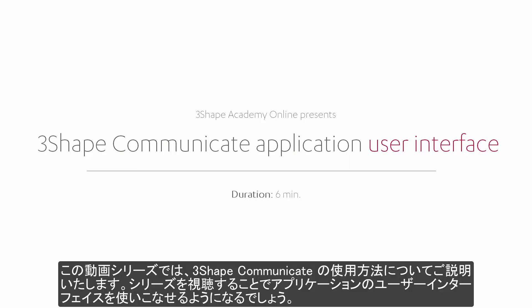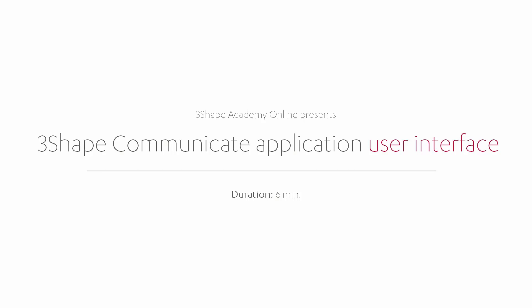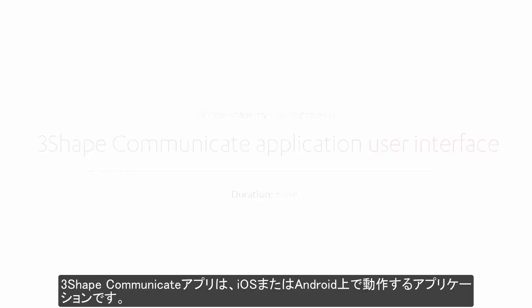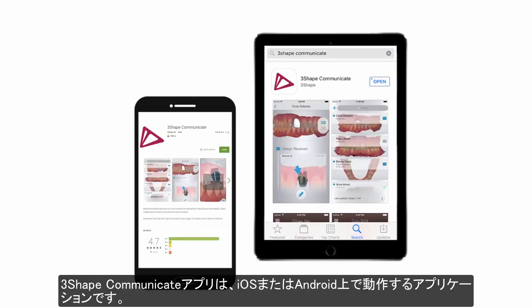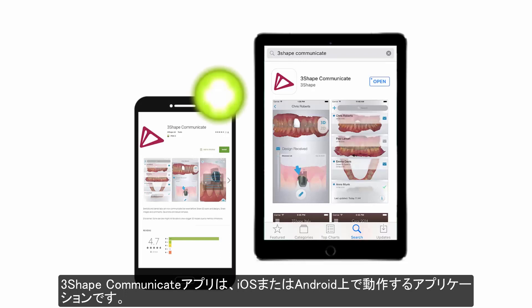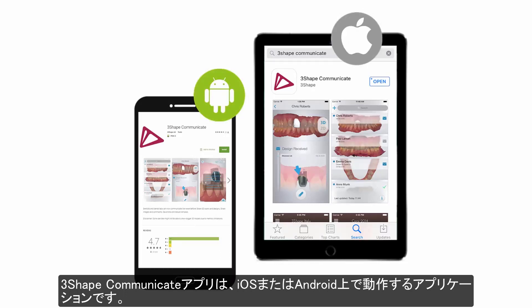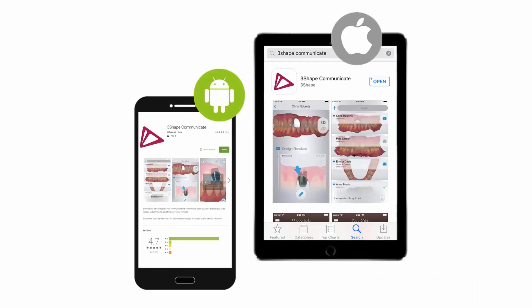Welcome to our series about 3Shape Communicate. While watching this video, you will learn how to navigate the application user interface. The 3Shape Communicate app can be installed on mobile devices, functioning on Android or iOS operating systems.